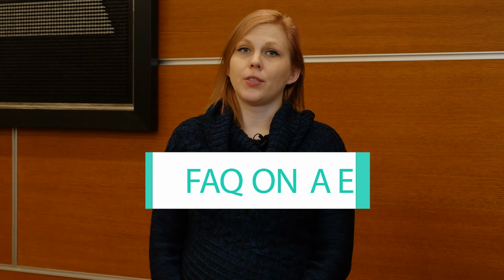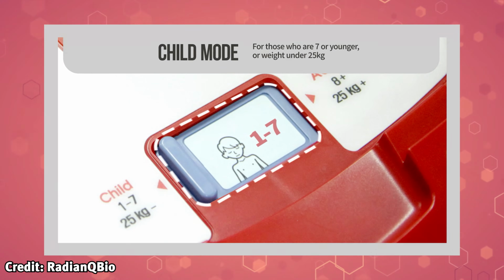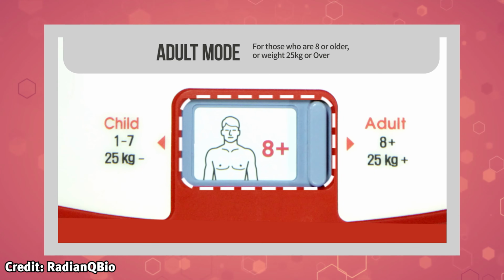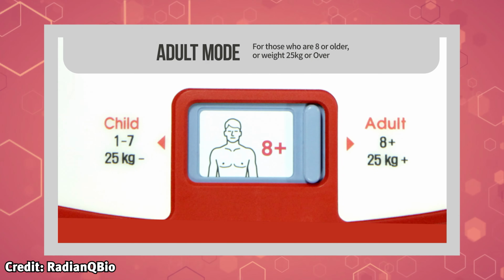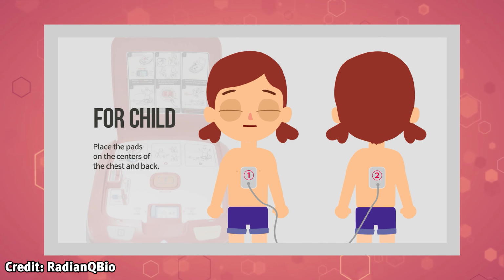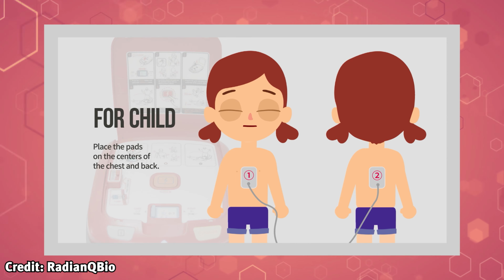Some common questions are: what about children? An AED is perfectly safe to use on a child who is more than 1 year old. If there are pediatric electrode pads and a pediatric shock setting available, use those. If not, you may use the regular pads and regular settings. Just ensure that one pad is placed on the child's chest and the other is placed on their back so they do not touch.